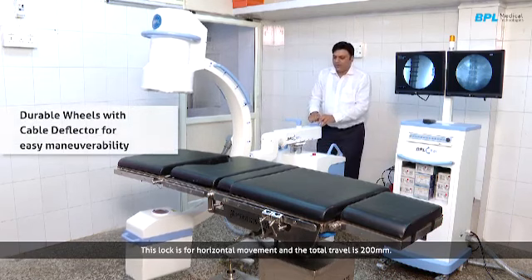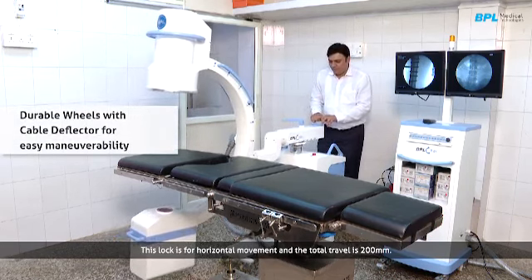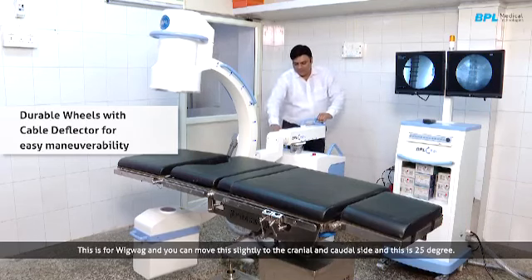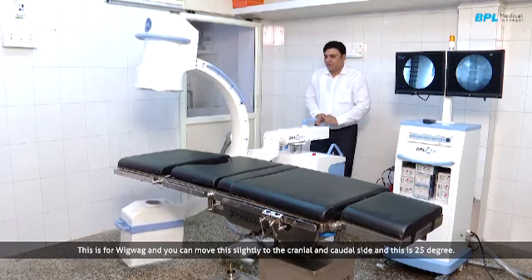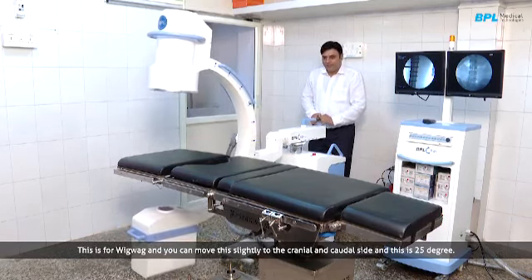This lock is for horizontal movement, and the total travel is 200 mm. This is for wig-wag, and you can slightly move this to the cranial and caudal side, and this is 25 degrees.